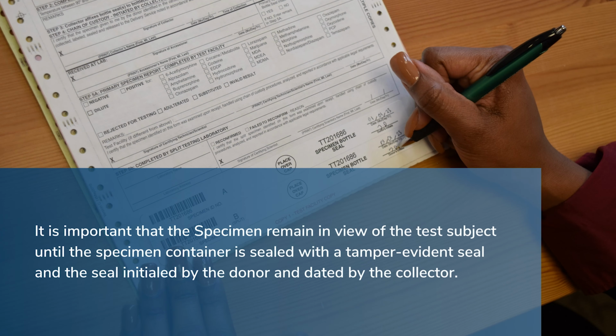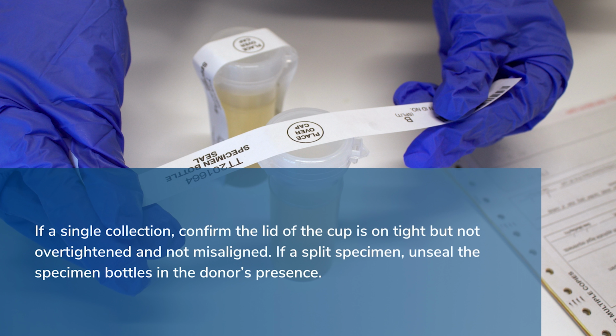It is important that the specimen remain in view of the donor until the specimen container is sealed with a tamper-evident seal and the seal initialed by the donor and dated by the collector. If a single collection, confirm the lid of the cup is on tight, but not over-tightened and not misaligned.